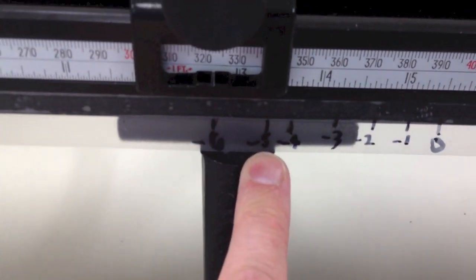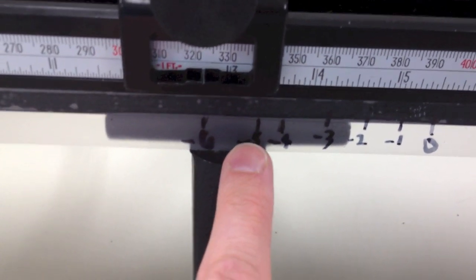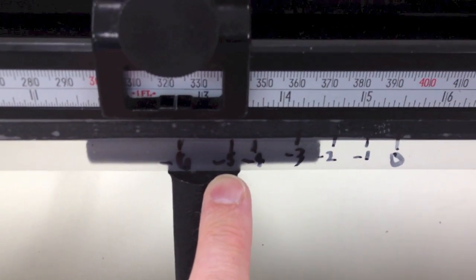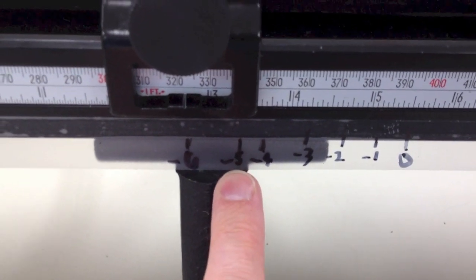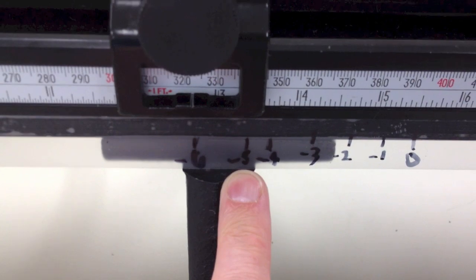For example, I probably made a mistake here when I did minus five because it's not exactly halfway between four and six. So I probably should go back and recalibrate that one again. But I wanted to leave that there to show you that I probably pushed this target a little too close and I started accommodating when I looked at it. So be kind of careful when you do that.